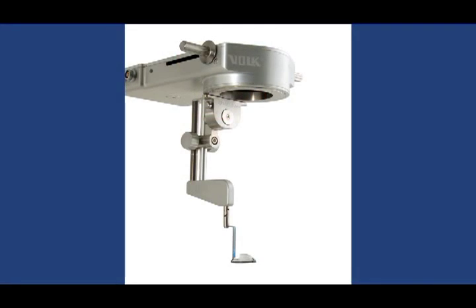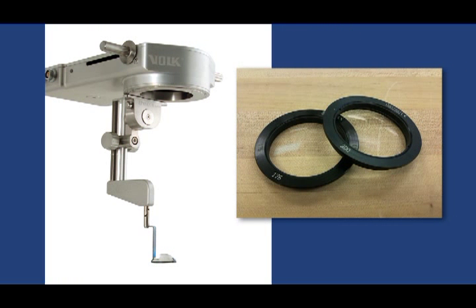As previously mentioned, the Merlin CLA has both automated and manual versions. Additionally, each version has two models, one for use with 175mm objective lenses and one for use with 200mm objective lenses.